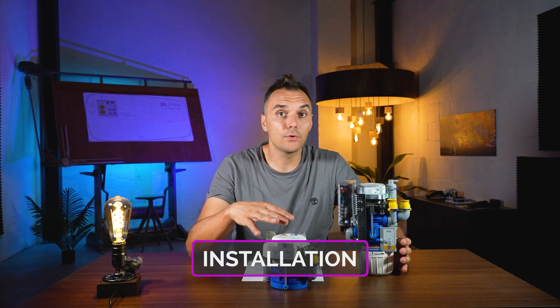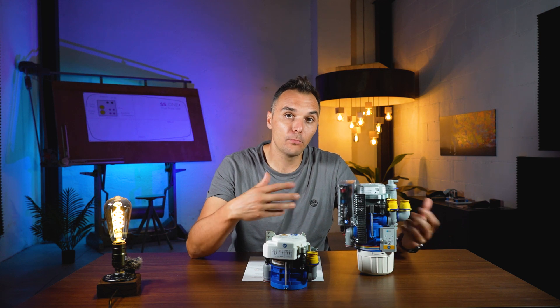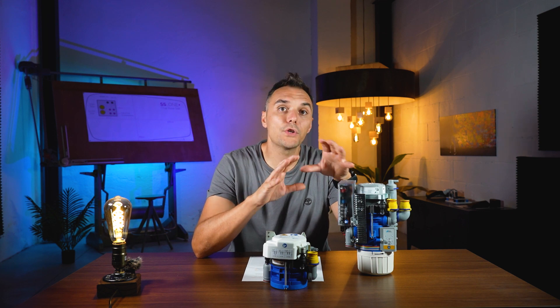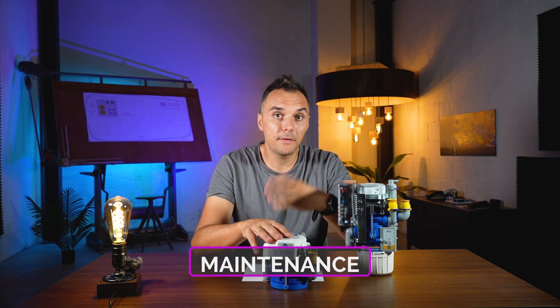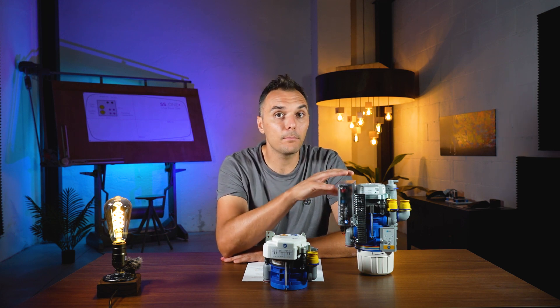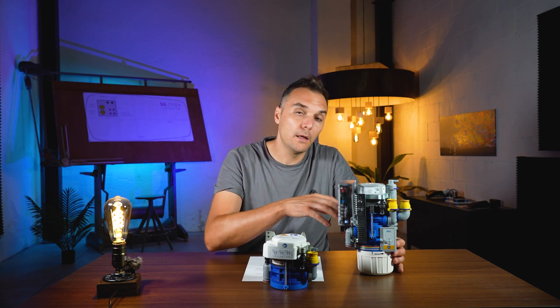Both systems have different installation procedures — you need to connect wires and pipes, so there is a hydropneumatic system to adapt as well as an electrical connection between boards and wires to make a proper installation. We are not going to cover installation in this video; we're just giving information about the different Durr valves and their purposes. The CS1 has no particular maintenance procedure, while the CAS1 is more sophisticated — you need to perform some checks during the year, and especially the amalgam collector, which must be emptied annually and has a cleaning procedure to follow.